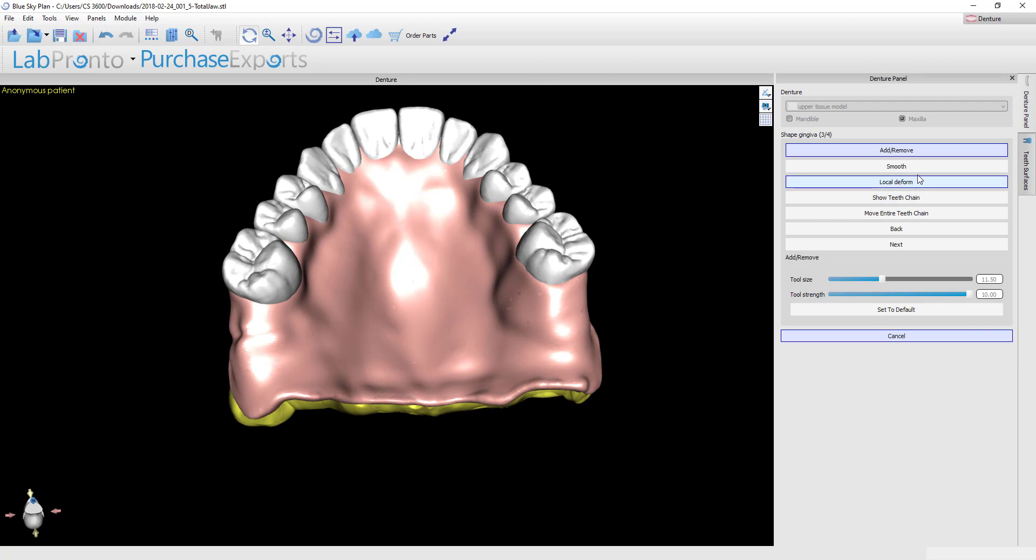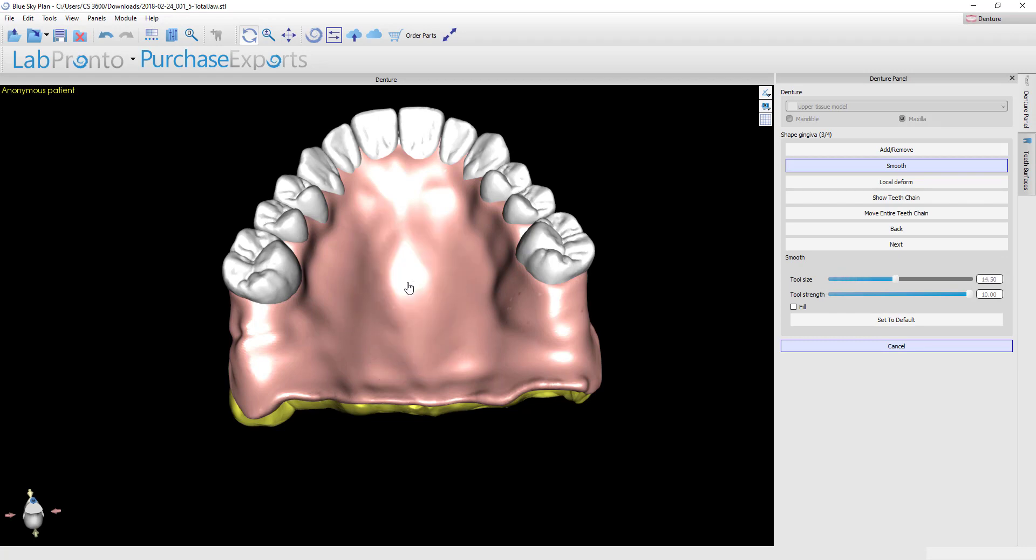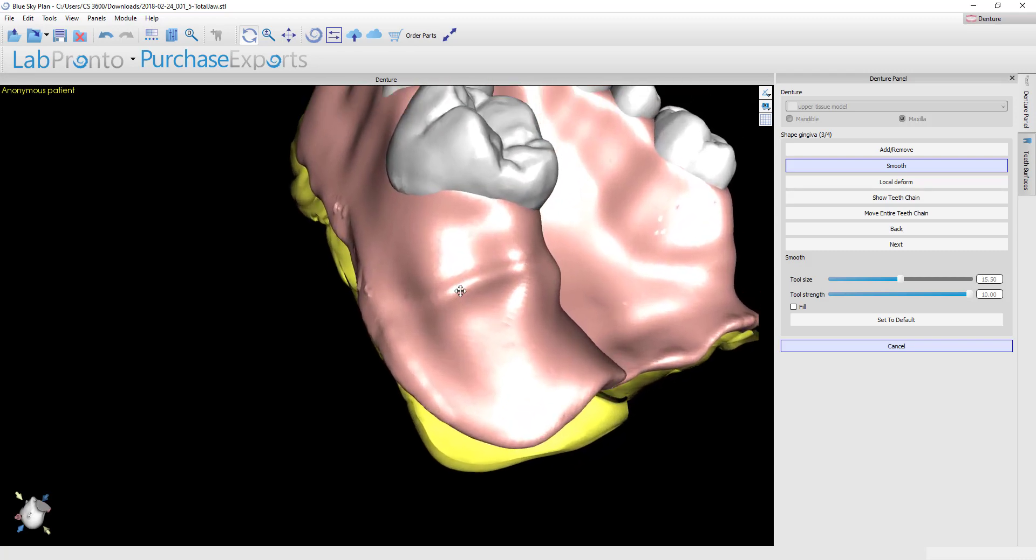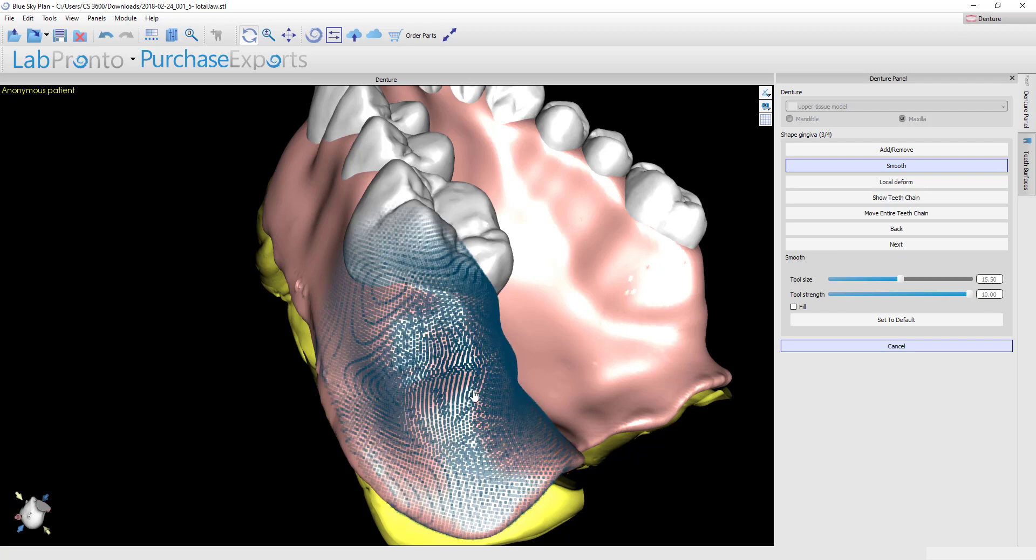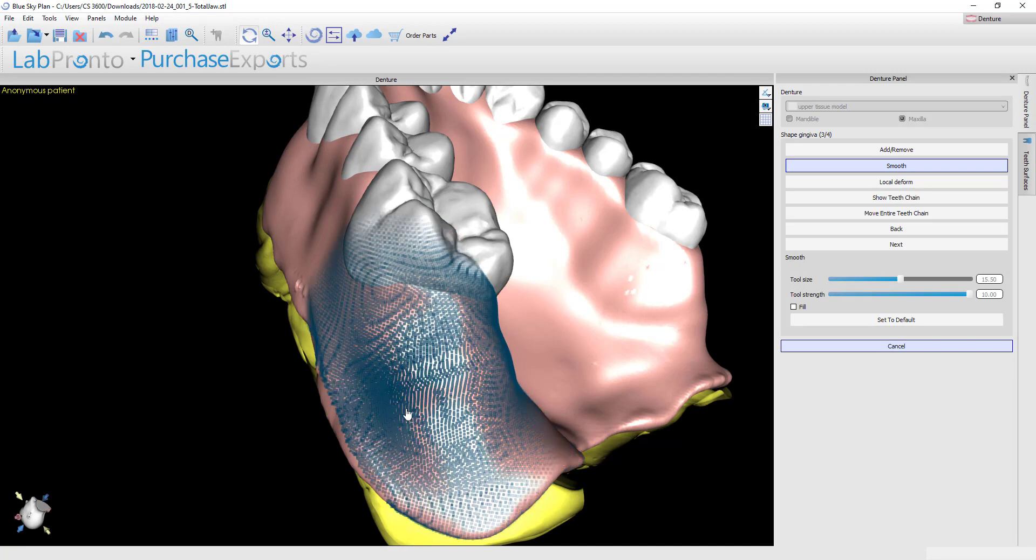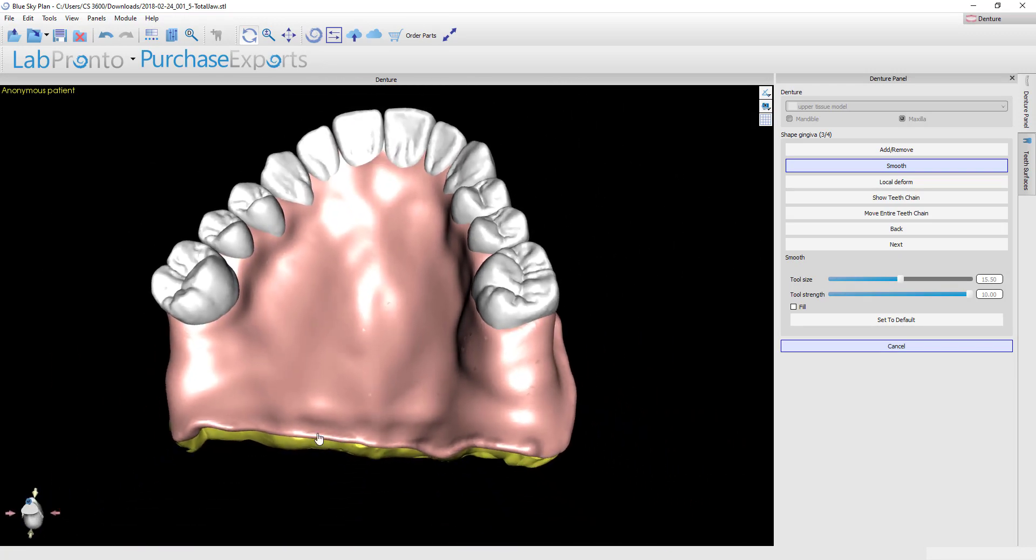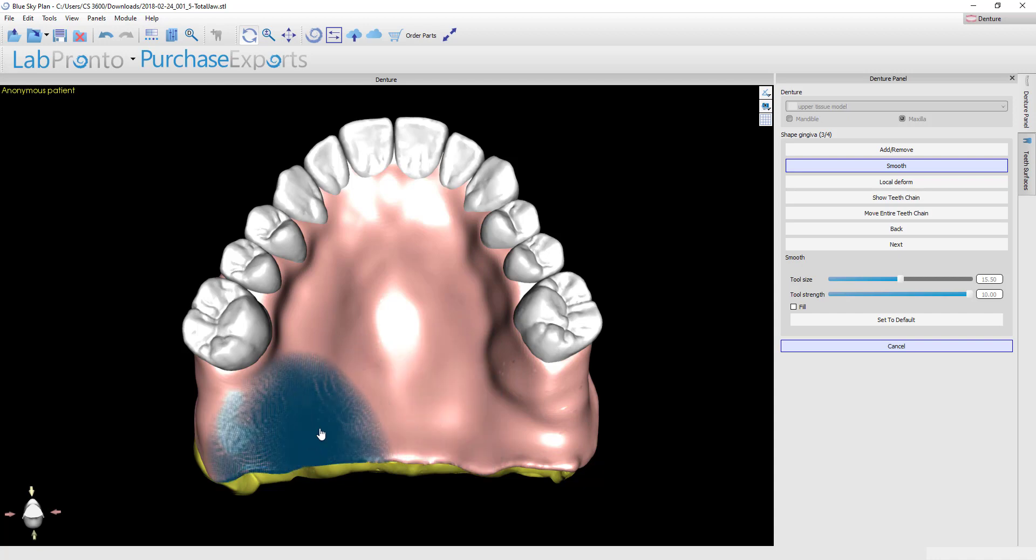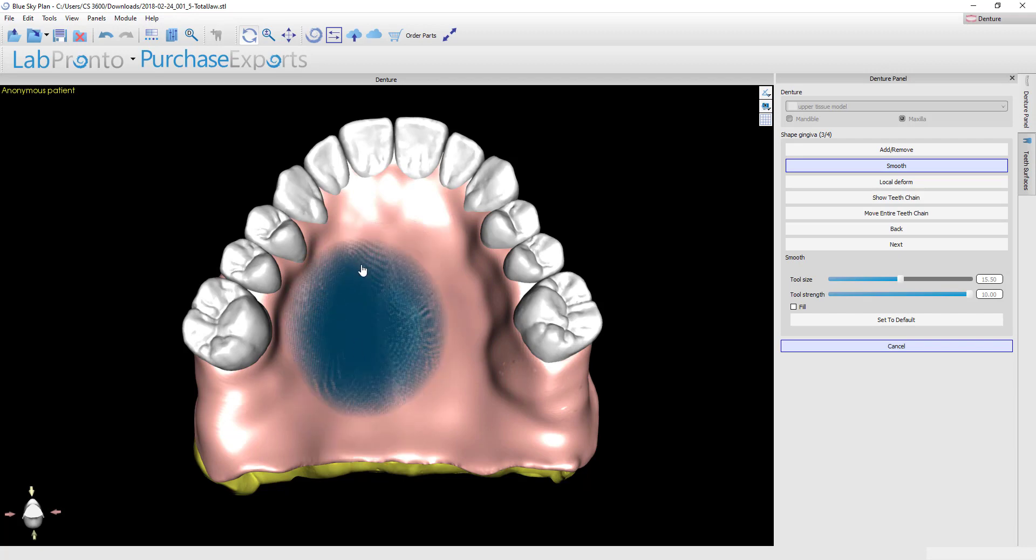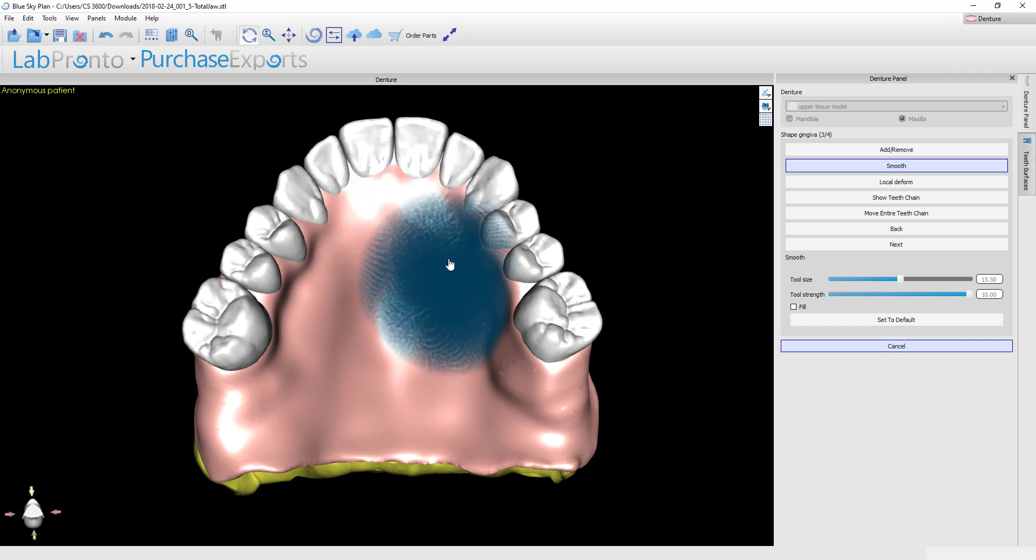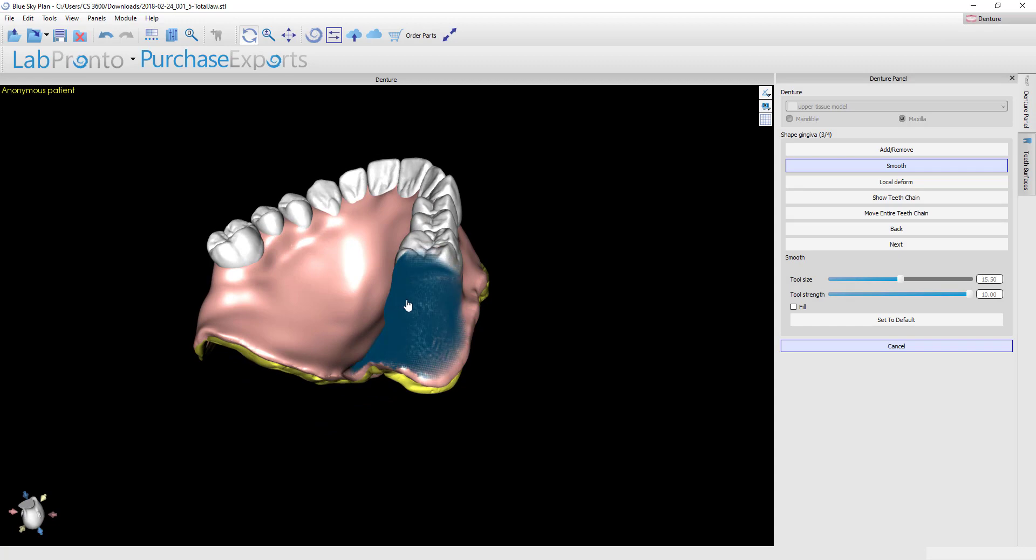The next tool would be your smoothing tool. You've got the exact same functions—you can increase or decrease the spot size using the shift key and then your mouse scroll ball. Same thing with the tool strength, you can go up or down with the control button. I'm going to get a fairly large spot size here and maximum strength on the smoothing, and I'm going to try to smooth out this wrinkle that I've created. By just left clicking while I'm holding the shift button, you can see that this will quickly smooth out any rough areas that you've got. Some people like to put palatal rugae in the tops of their dentures, others want that completely smooth—that's just a user preference.